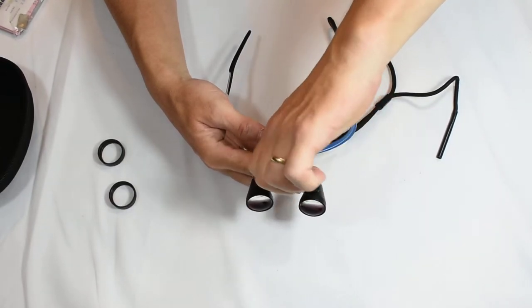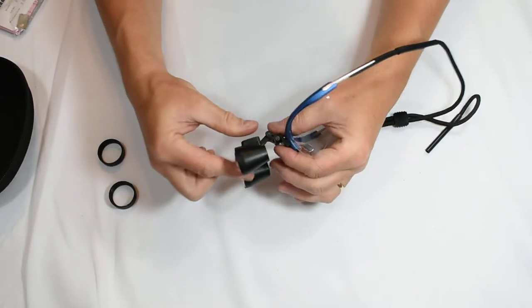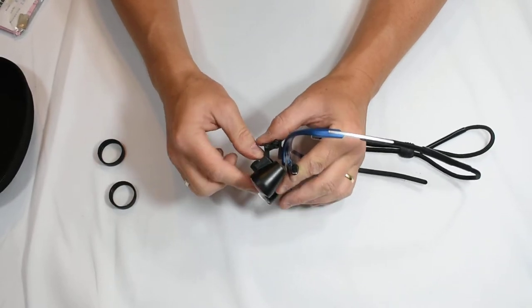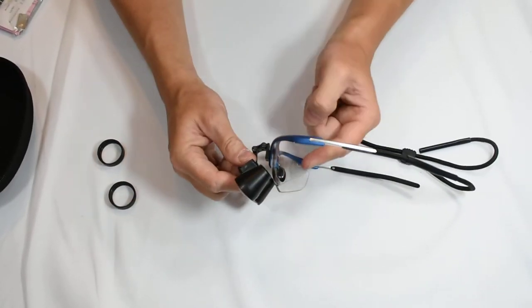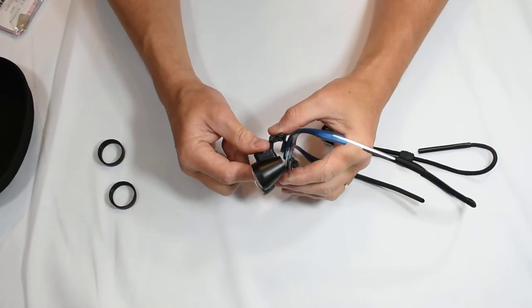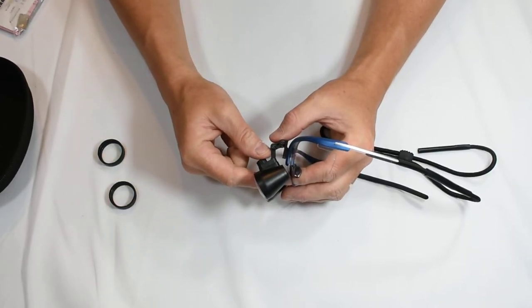What I want to do as I get ready to use these is adjust that. So folding them down for the first use, I want to line up my pupils with the light that passes through these telescopes. So I want them to sit just underneath my pupils here.